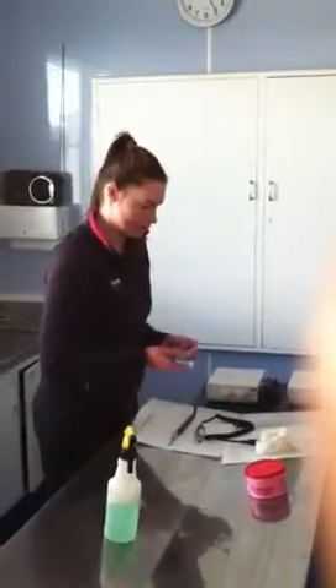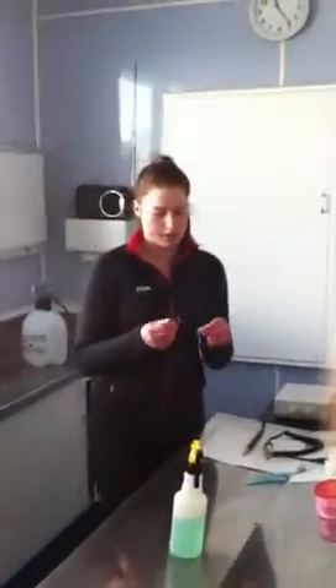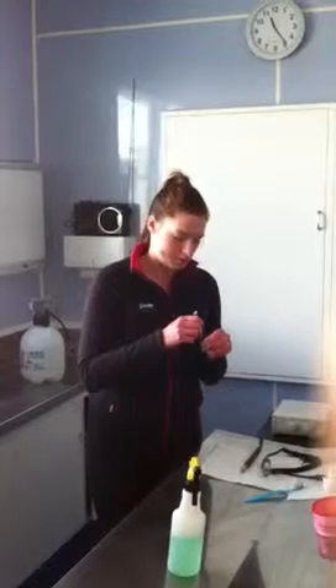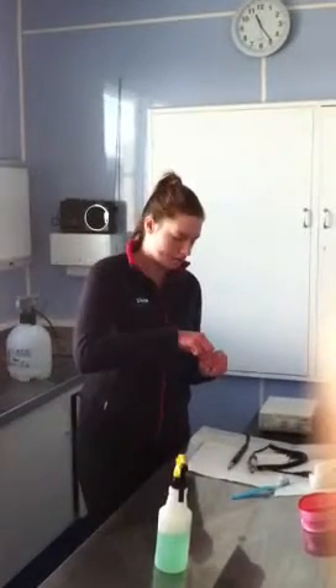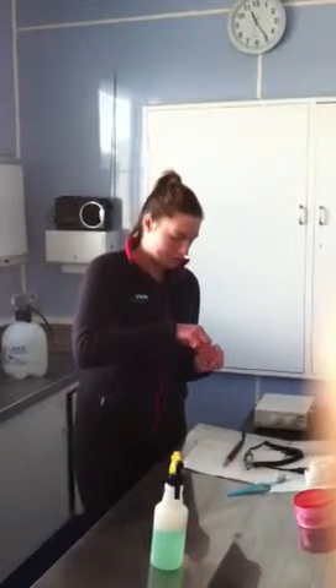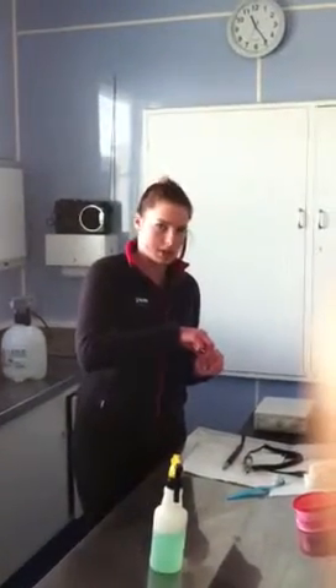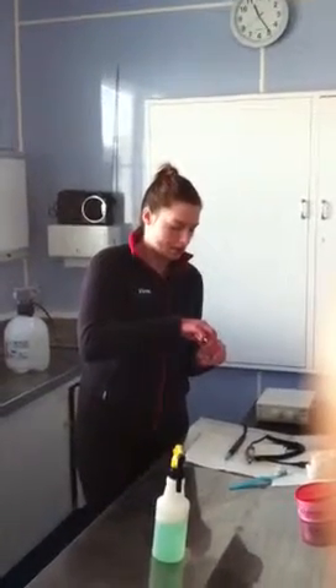No fluid. Then what I need to do is take apart the top of this by unscrewing the head, because a lot of the liquid and bacteria can get into this area and it needs to be cleaned out.